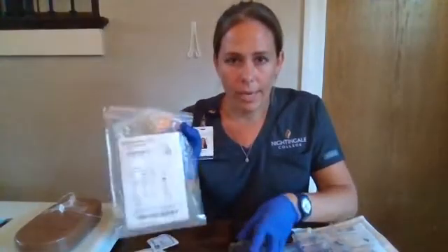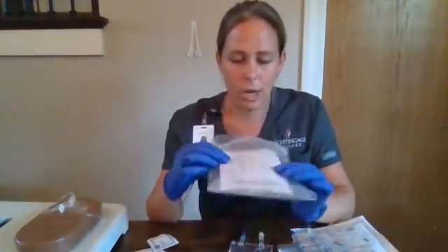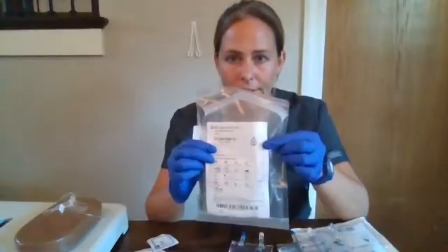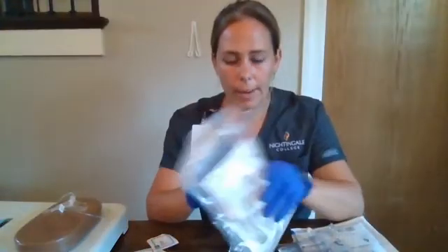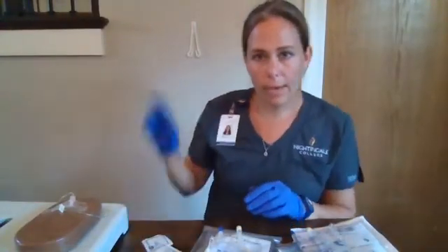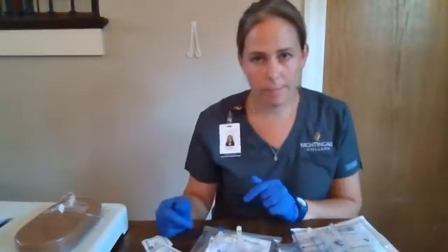We have a secondary set that is also macro drip at 15 drops per mL. We have our alcohol preps, and we have our piggyback hanger.